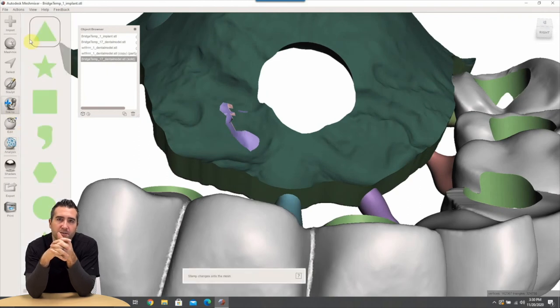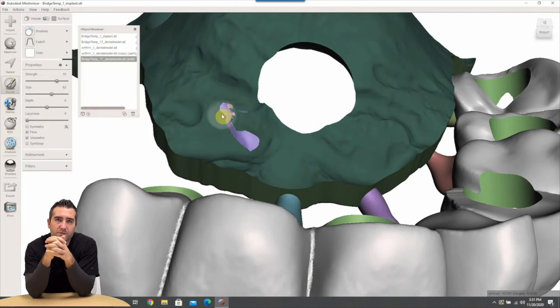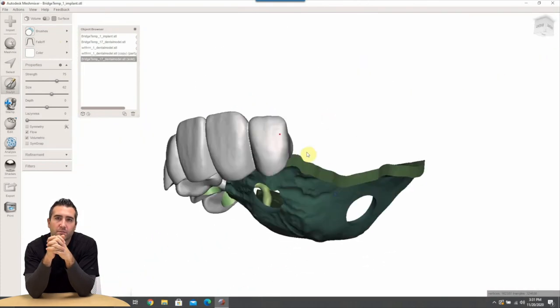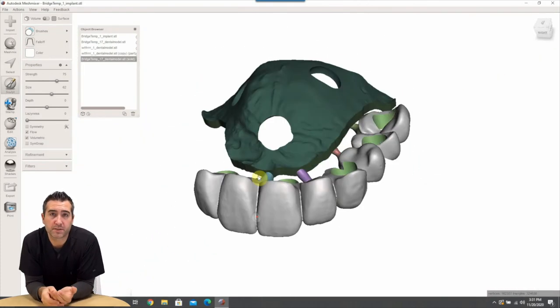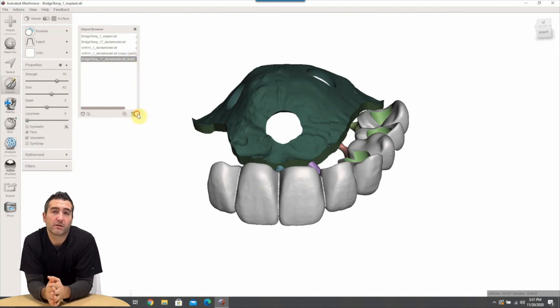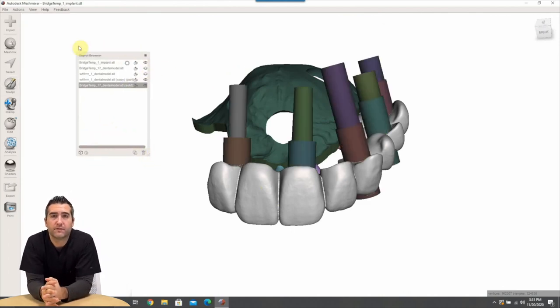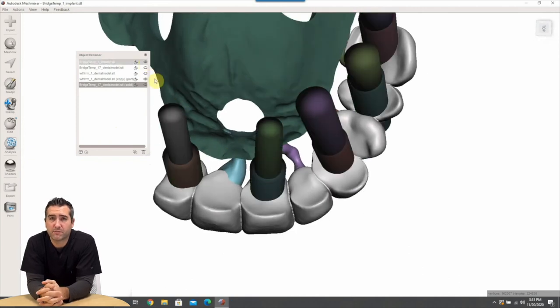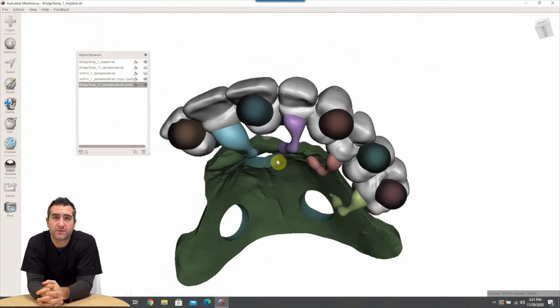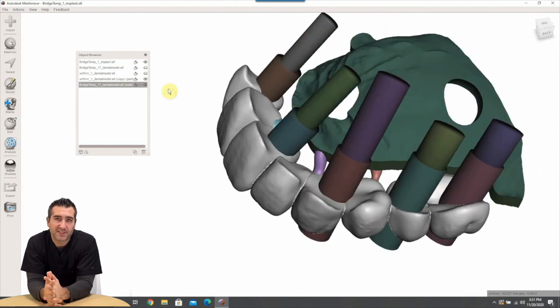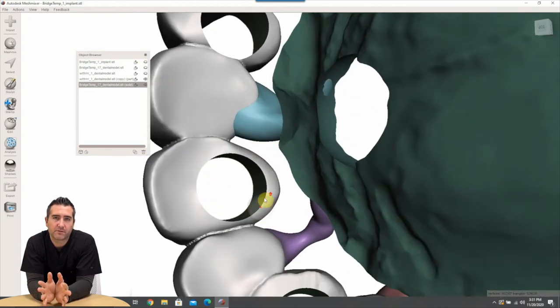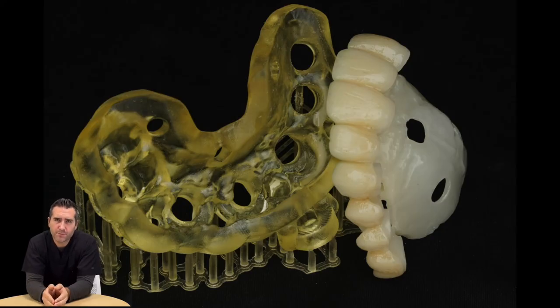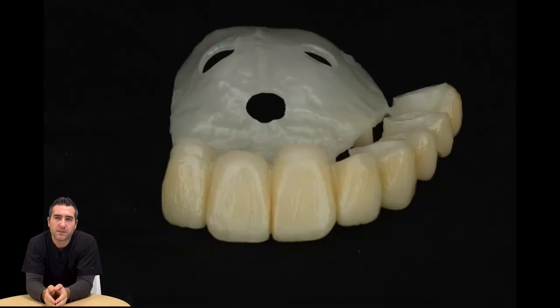So you can see here we have a pretty good adaptation here. One little spot poking through, I'm gonna go ahead and use bubble smooth, hit control to kind of melt that back down. That's it. So we're gonna go ahead and export this as a STL, binary STL and mill it, put in the CAM software, mill it. If you didn't have a mill you can 3D print it. If you did 3D print it we would make it much much much thicker for strength. But how cool is this guys, literally we're down to about five minutes design time on these now once you know what you're doing.